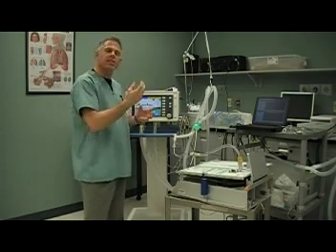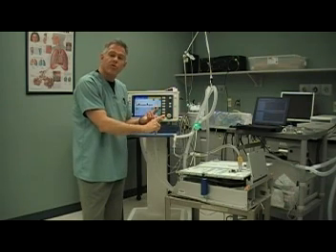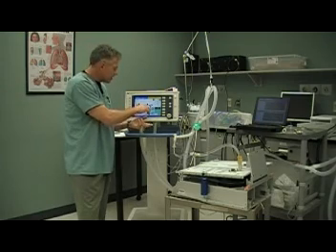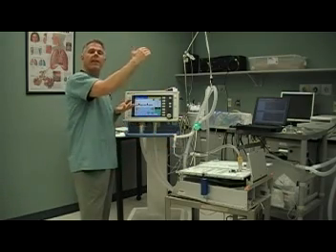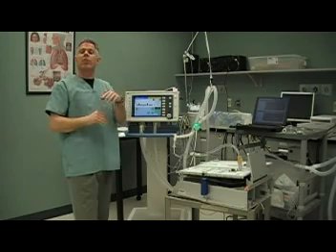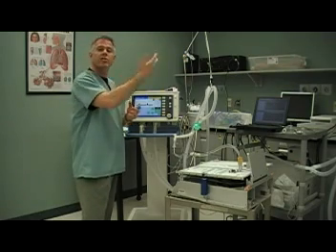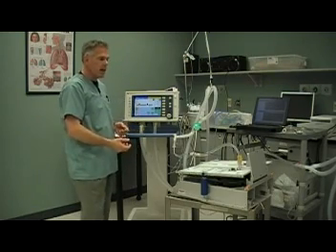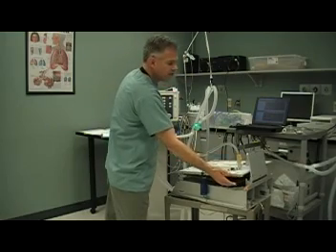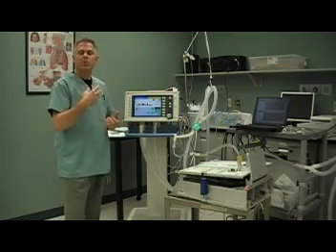The classification system indicates how the mode responds to patient effort: it's triggered by patient effort — flow or pressure — so it's patient-triggered. It's pressure-controlled; we set the amount of pressure. And it's flow-cycled. We have a pressure limit and then a flow cycle occurring. When inspiratory flow declines to approximately 25% of its maximum flow, the ventilator cycles from inspiration to exhalation. We can have very long breaths, very short breaths, very small quick breaths — it's totally determined by the patient's inspiratory efforts.